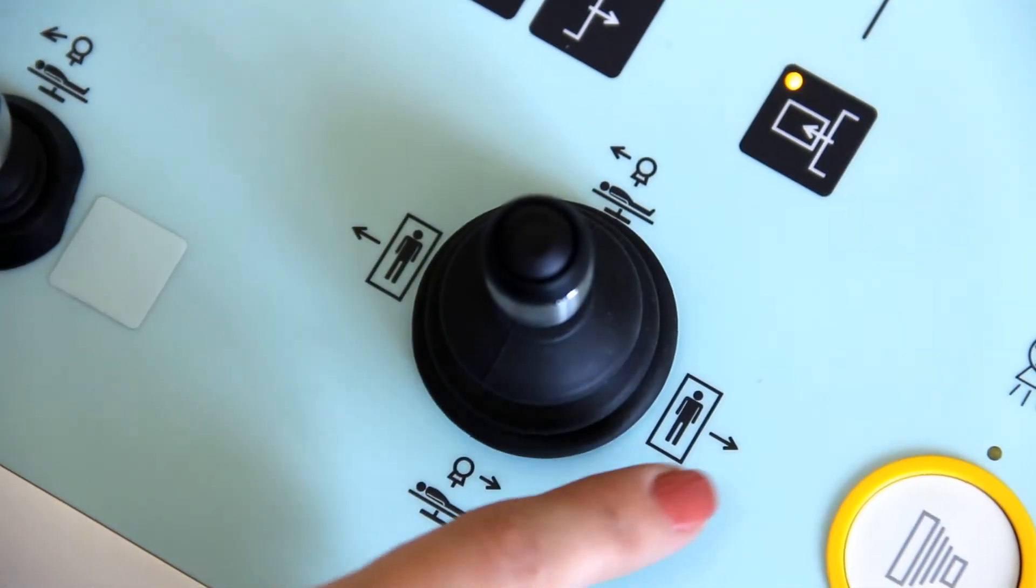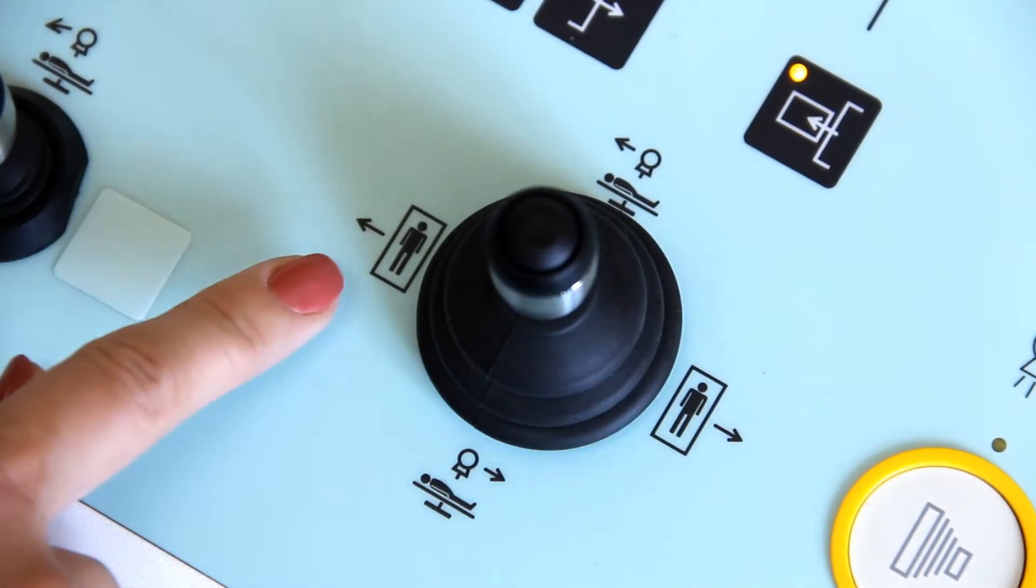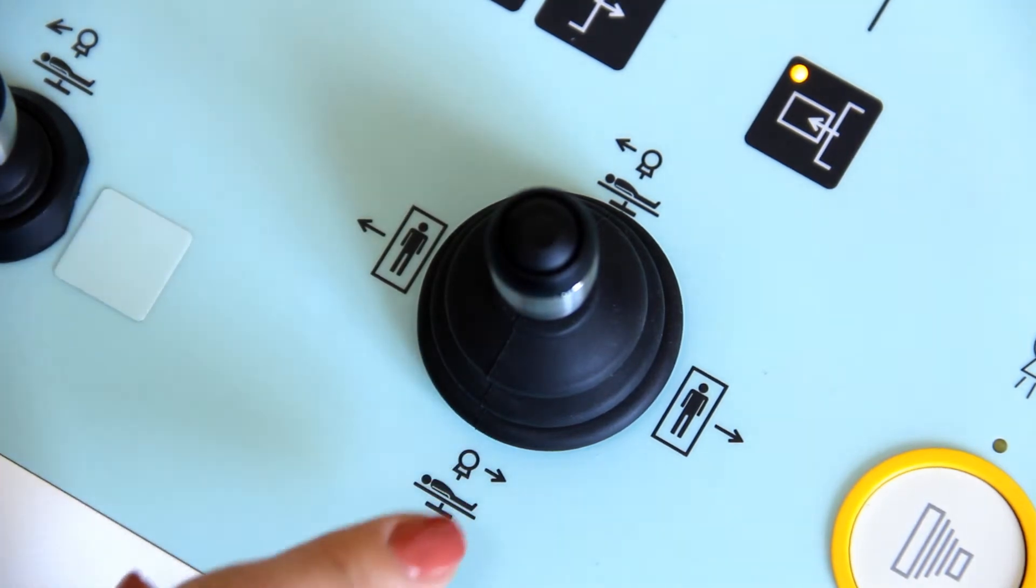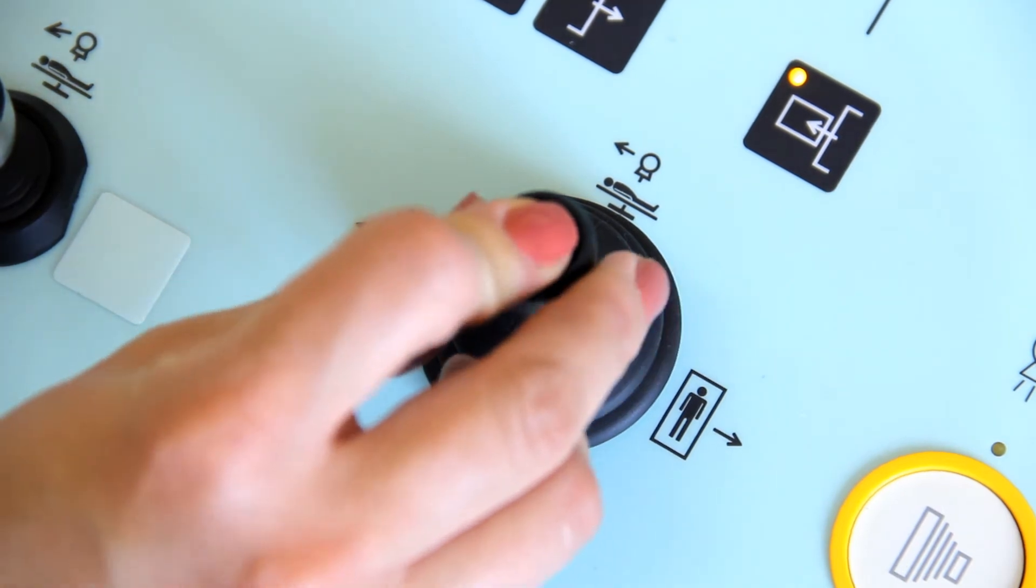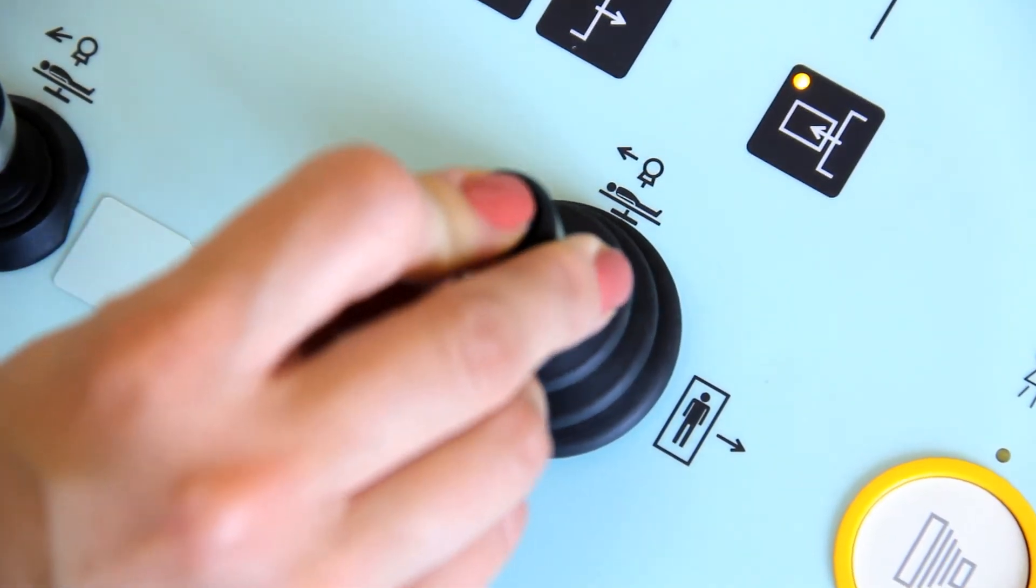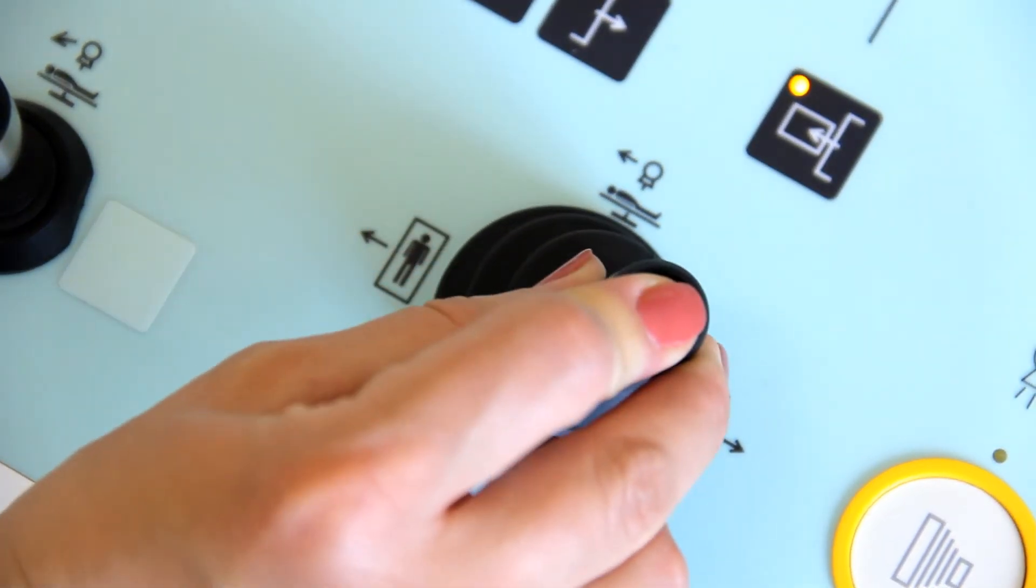Control block over the transversal tabletop movement and longitudinal tube movement during the scanning, two-step exposure button.